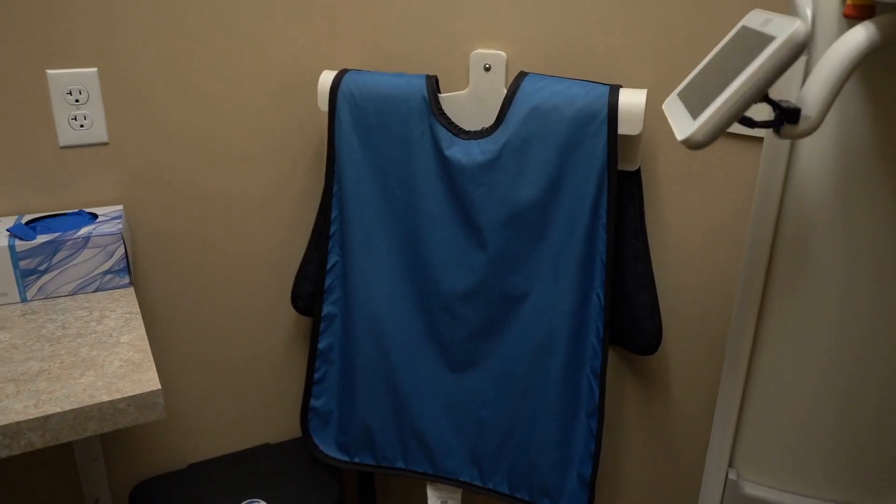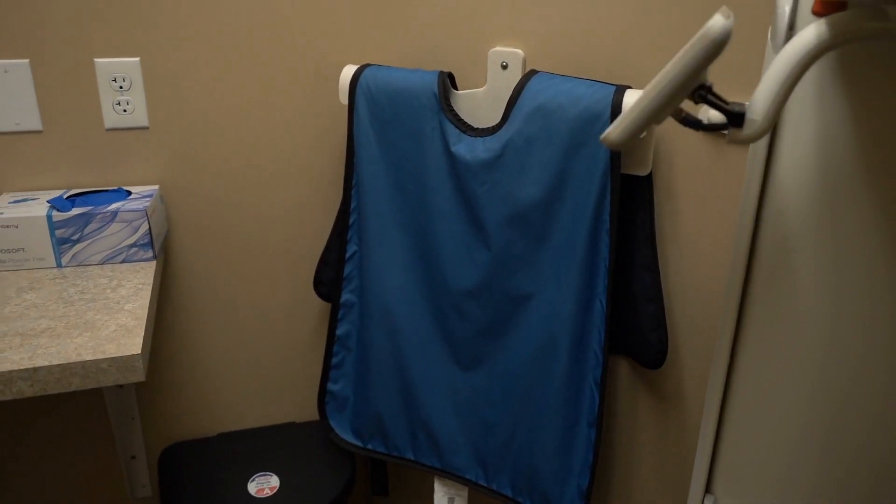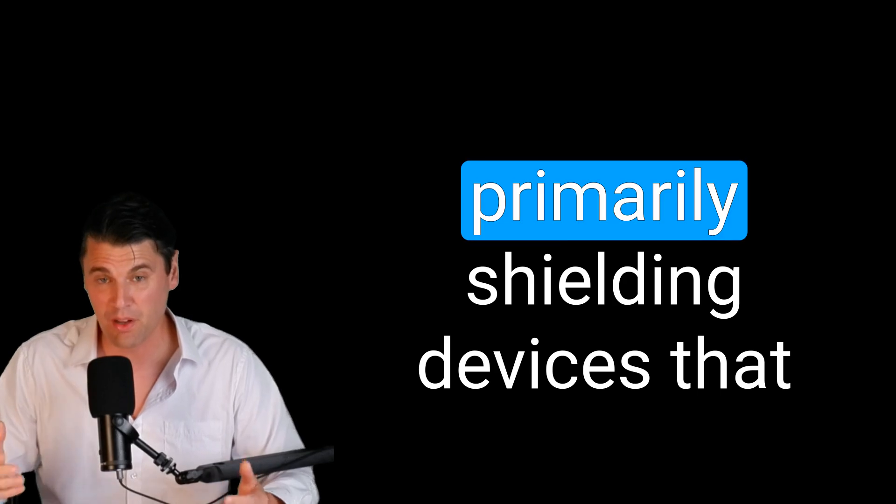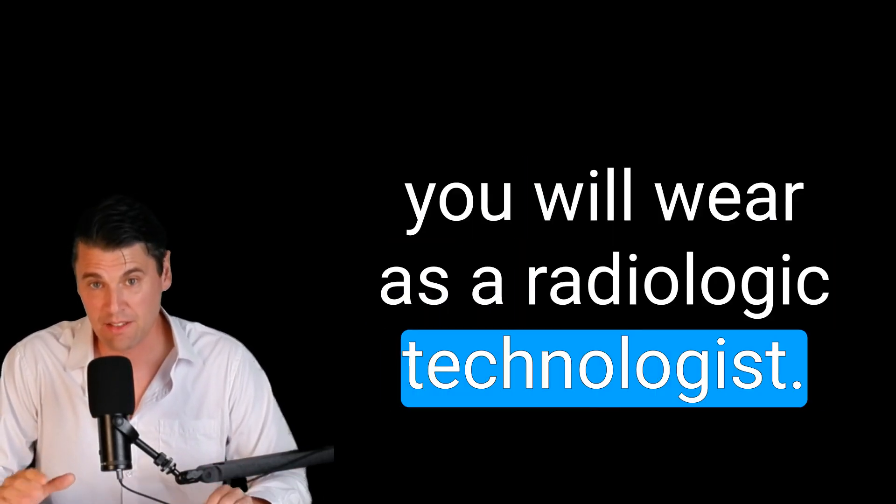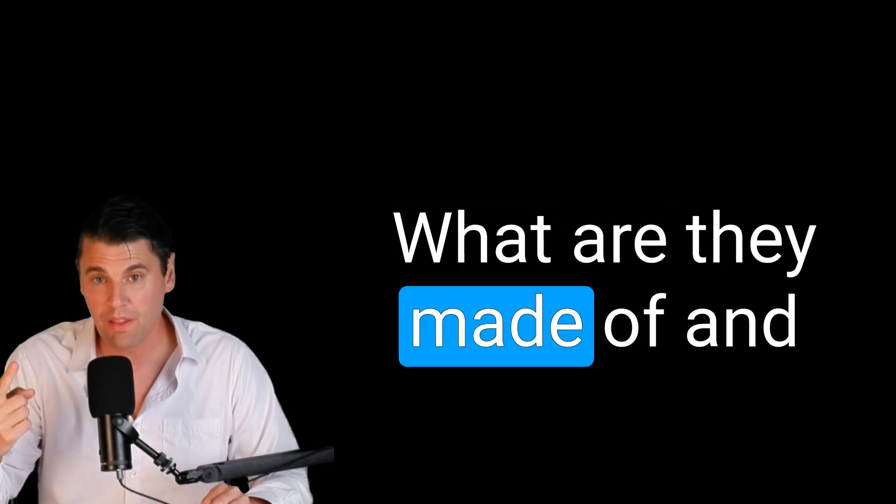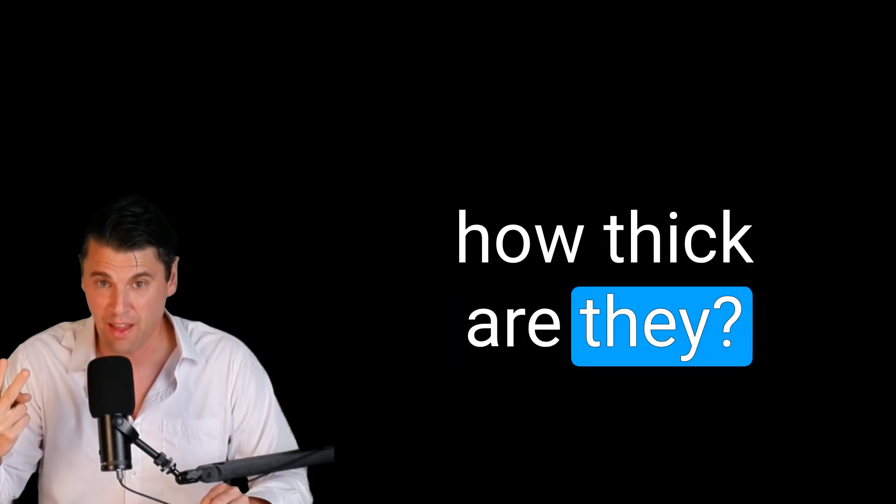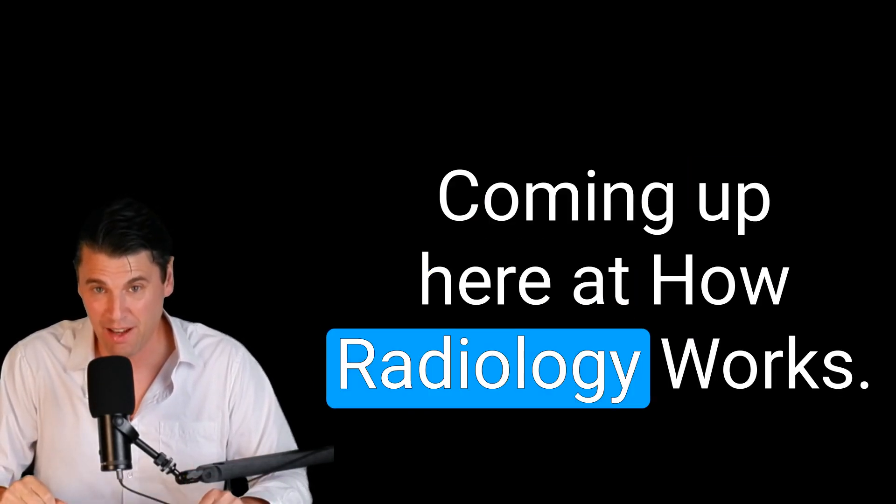All right, Rad Nation. Today we're going to be talking about protective devices, primarily shielding devices that you will wear as a radiologic technologist. What are they made of and how thick are they? Coming up here at How Radiology Works.